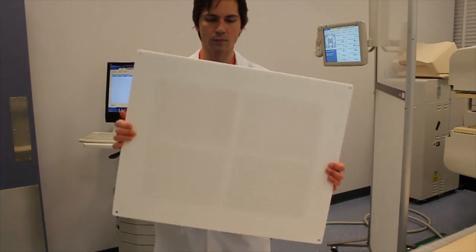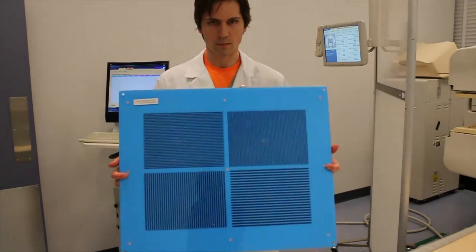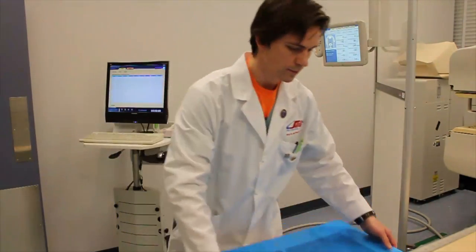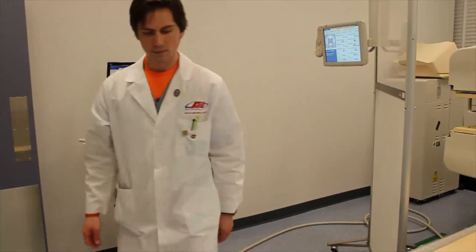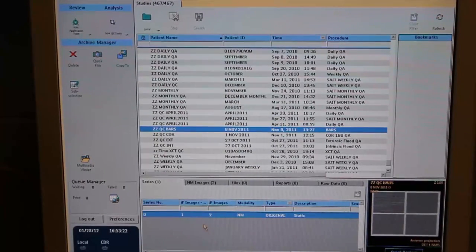Here is a quick review of the positions that would be required for each detector. So it's a total of eight images for the weekly spatial resolution linearity.